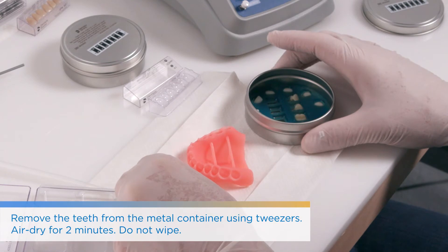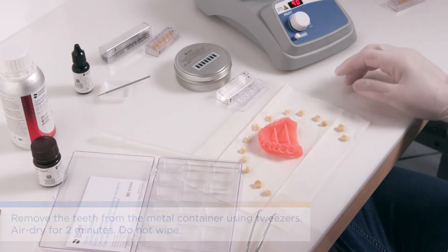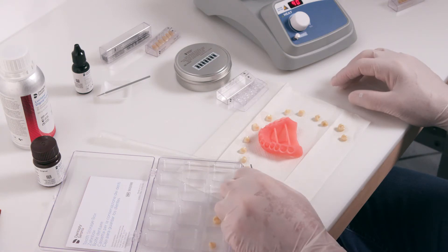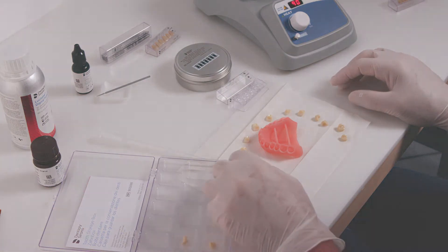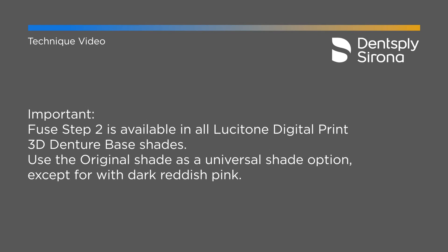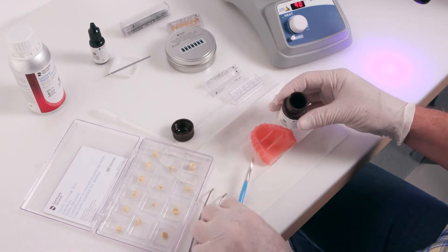It's really important that when you have the container on the heating plate you let it get to 40 degrees Celsius. The sticker on the top will turn green at that temperature — watch carefully to ensure it's not going over 40 degrees. Let the teeth air dry and then place them in the tooth storage box that the system comes with.